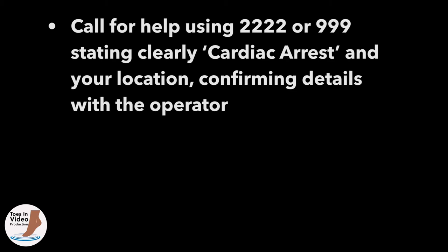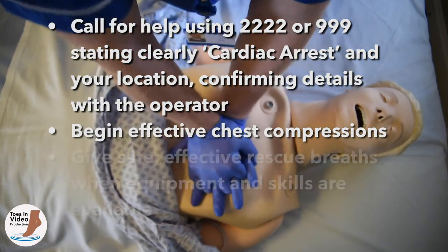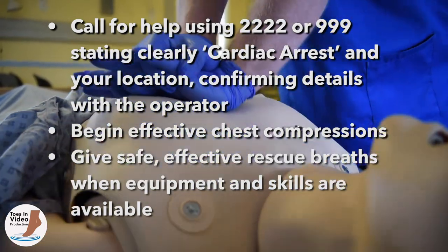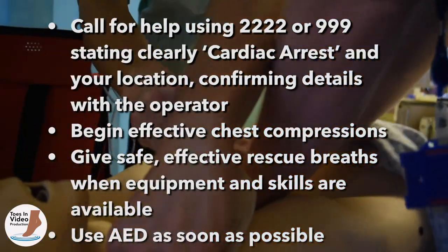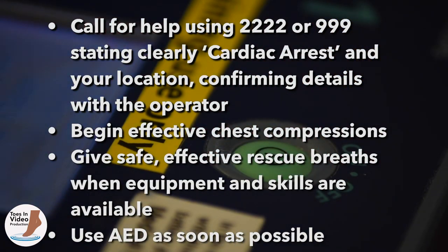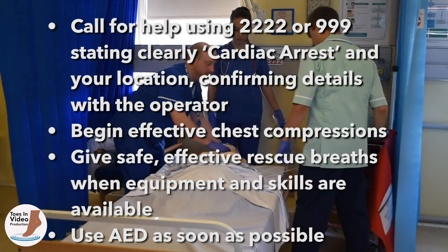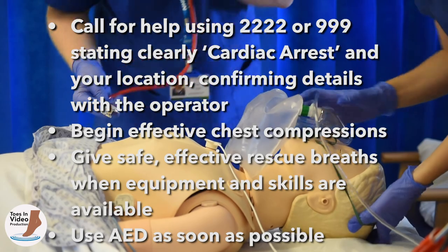If you have a mobile phone with speaker function, activate it and place it next to the patient. Begin chest compressions at a ratio of 30 compressions to 2 rescue breaths where you have equipment and skills to deliver rescue breaths; give compression-only CPR if you have no equipment but help is on the way. Compress the chest 5–6 cm, roughly twice a second, allowing the chest to recoil and avoiding moving your hands. When the defibrillator arrives, place the pads appropriately without interrupting CPR, attach them to the device, switch it on and obey the prompts. If advised, safely shock the patient and resume CPR immediately. If no shock is advised, assess for signs of life. If the patient shows signs of life, place them in the recovery position, give oxygen and monitor them without removing or switching off the defibrillator.